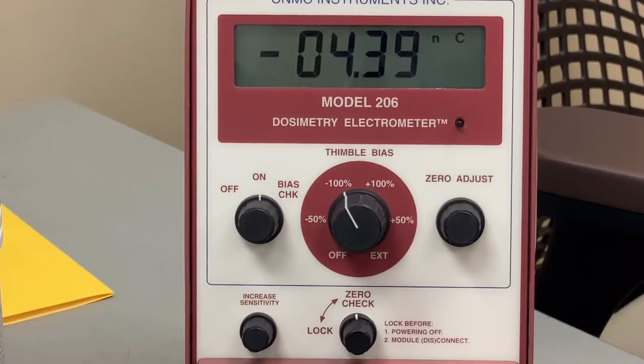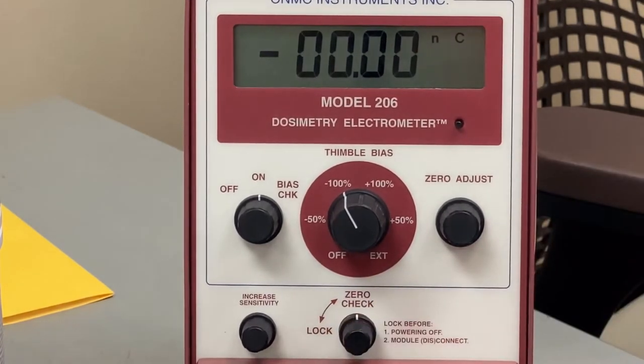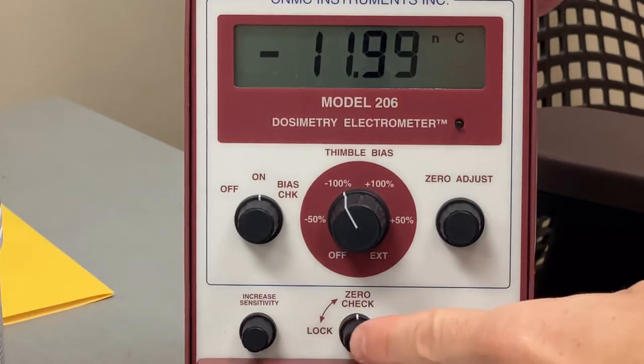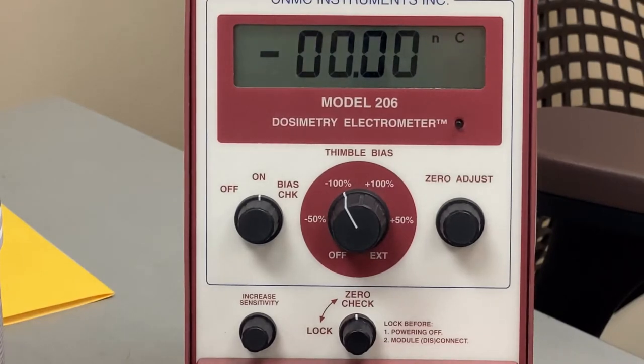One thing on the electrometer to take a note of, we're going to set our bias to minus 100, which is technically minus 300 volts. You can adjust the sensitivity in order for you to get additional sig figs, and each time you take a reading you can hit the zero check to clear and start over. If you're uncertain of what bias it's set to, you can scroll to the right where it says bias check and essentially they'll tell you what the actual bias is set to. Now you hit prepare, now we're ready to shoot. We're going to take an average of three readings for our M minus raw. All right, so now we have our average of three readings for our M-Raw.